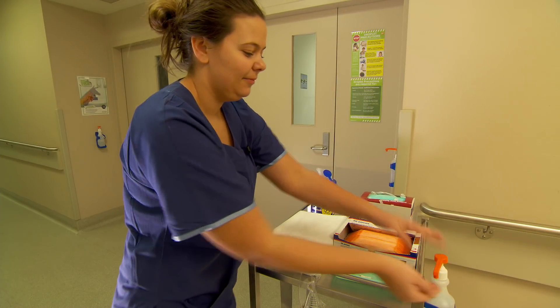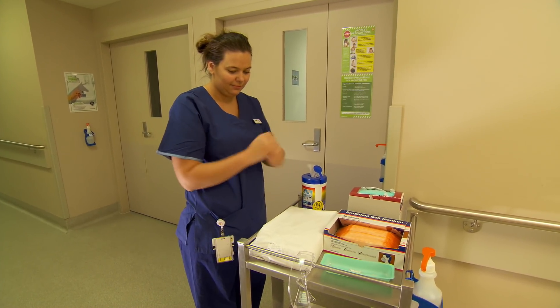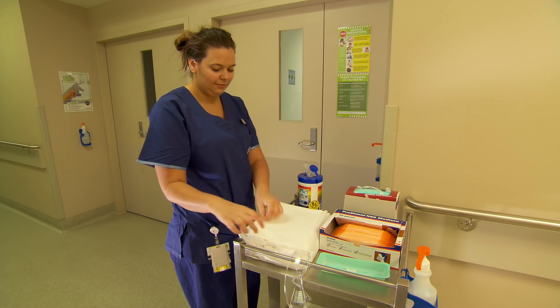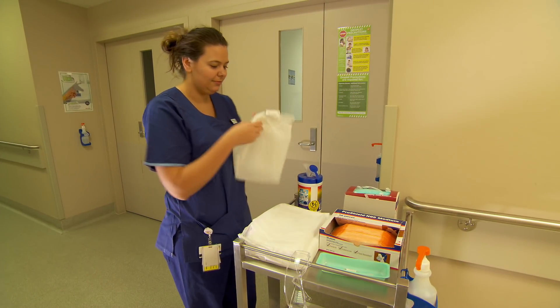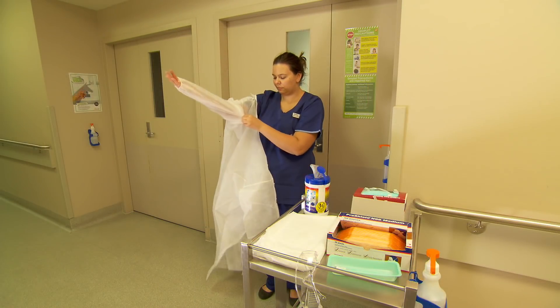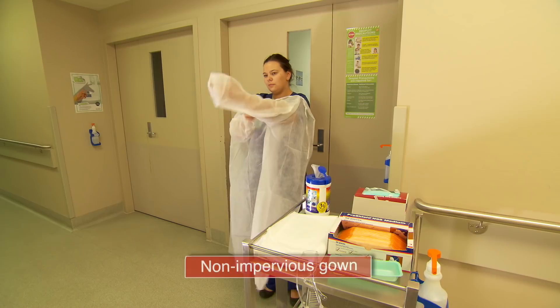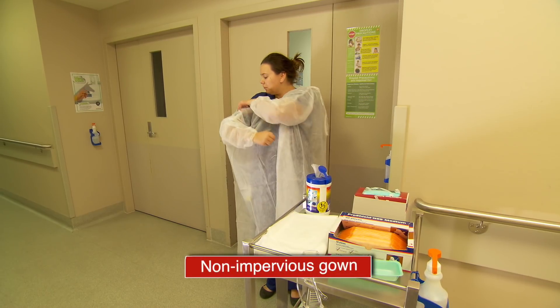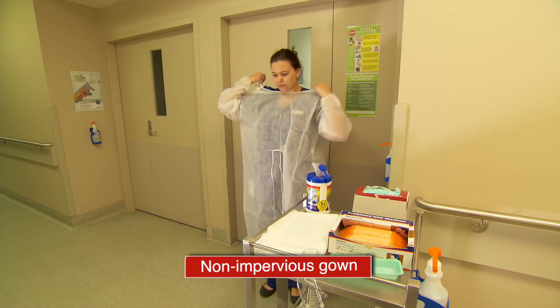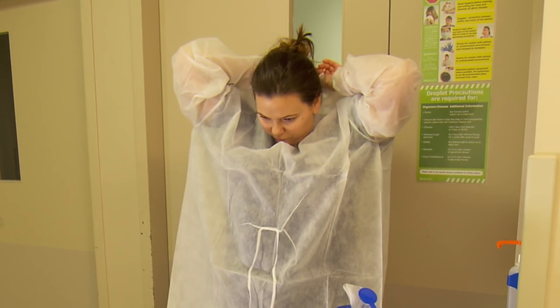Hand hygiene is the first step when commencing any type of procedure, ensuring that the alcohol-based hand rub is allowed to dry before proceeding. A non-impervious gown is required next, ensuring that the gown is tied up at the back of the neck and around the waist.